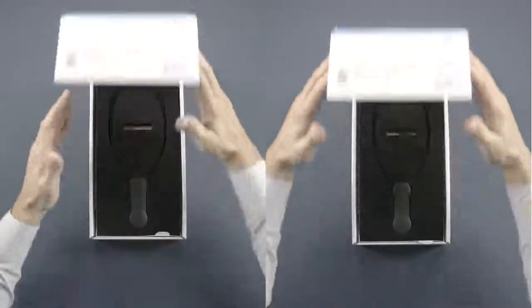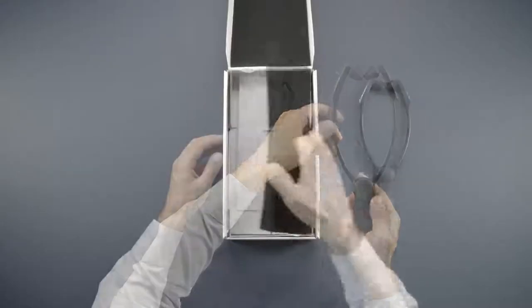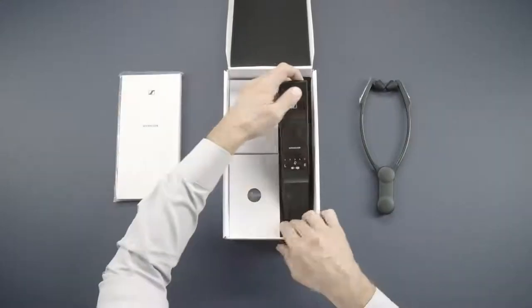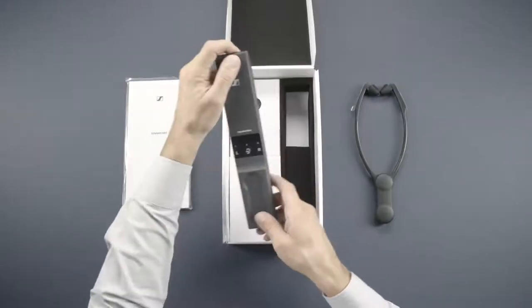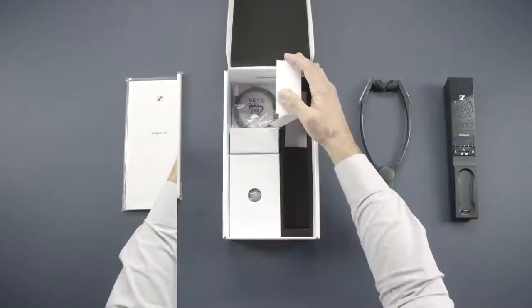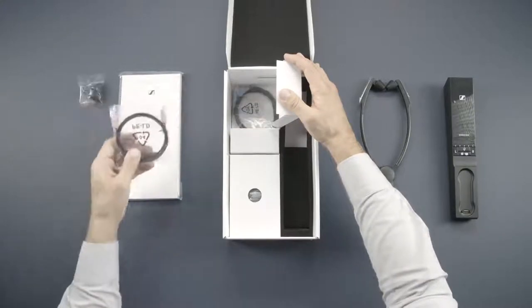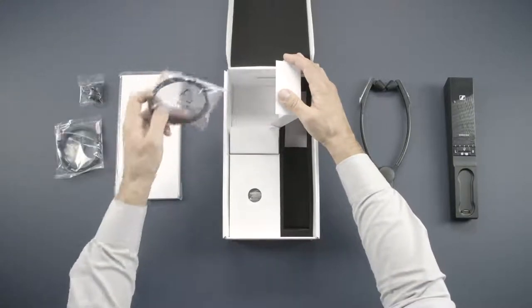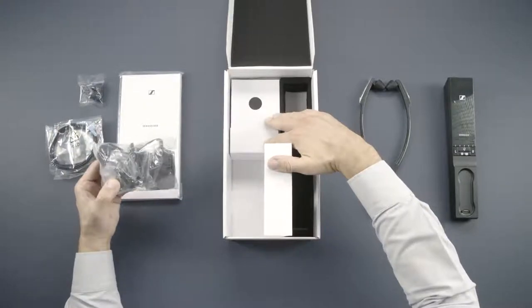In the box you'll find the headphones, the manual, the docking station, spare earpads, a digital audio cable and an analog one. And of course, the power supply.